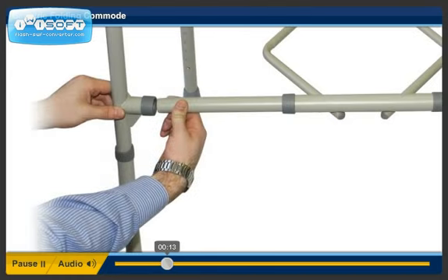Step 3. Push in the locking button on front frame and insert completely into receptacle until it locks into place. Do the same for the other side.